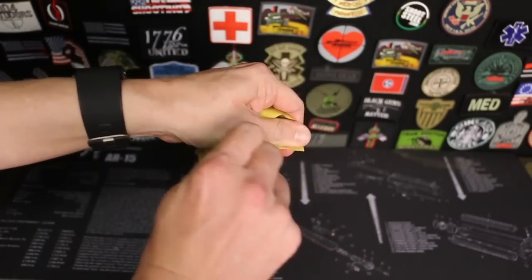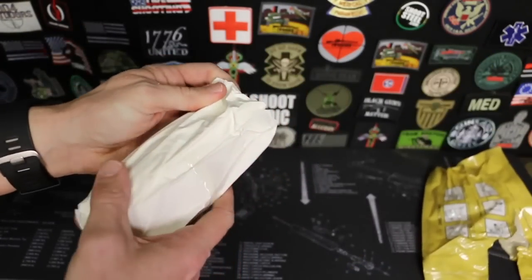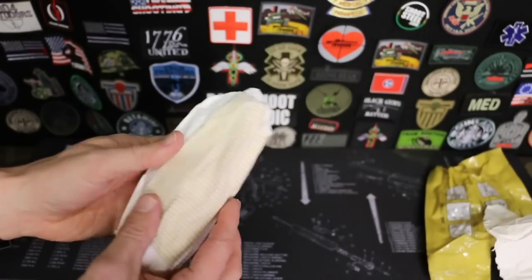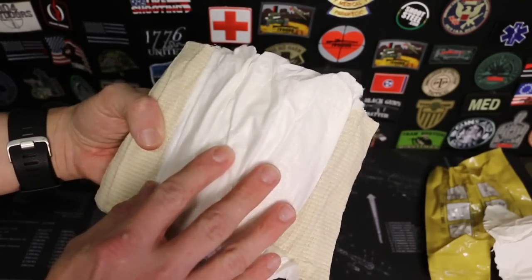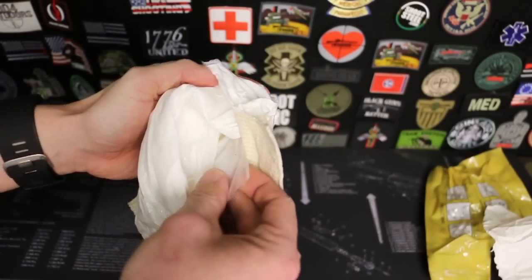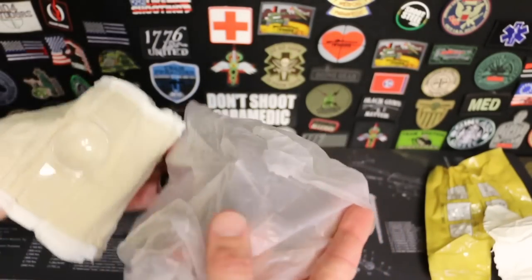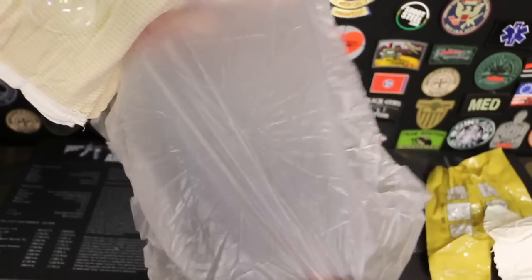Let's pull this open and see what we have. You can take that wrapper and leave it for your directions - it has a place to put the paper cover. Now this is our bandage we're going to use. It has an absorbent pad here, and there are some goodies tucked behind it. We have material to make an occlusive dressing, so if you had a chest injury like a sucking chest wound or penetrating trauma to the chest, you have the ability to make an occlusive dressing using this plastic material.